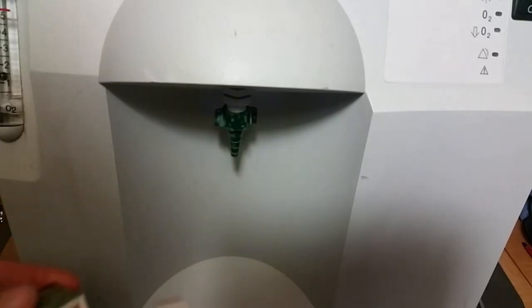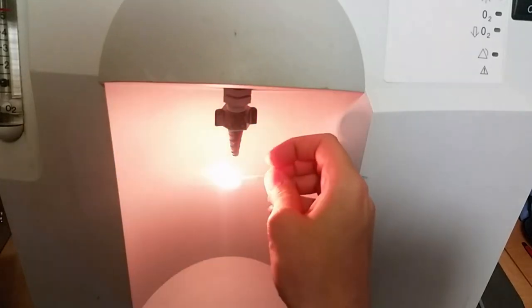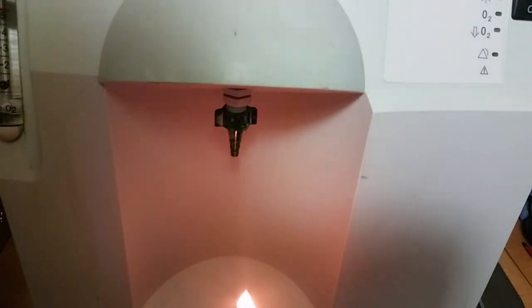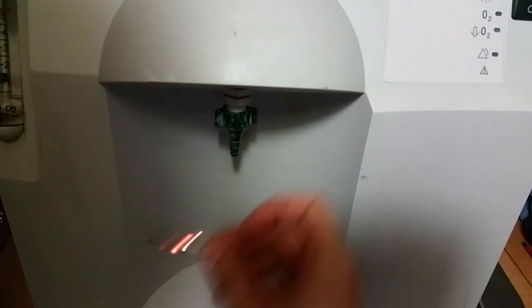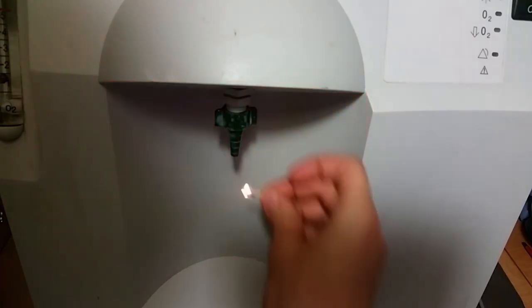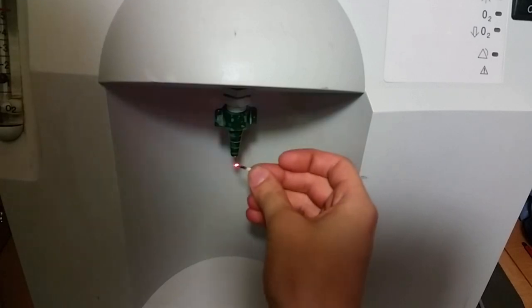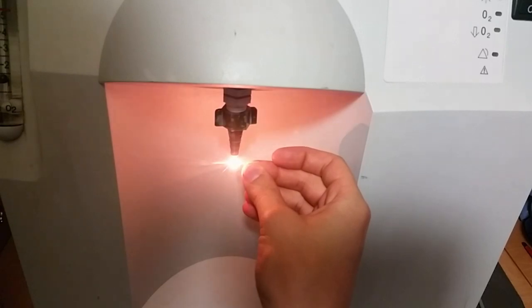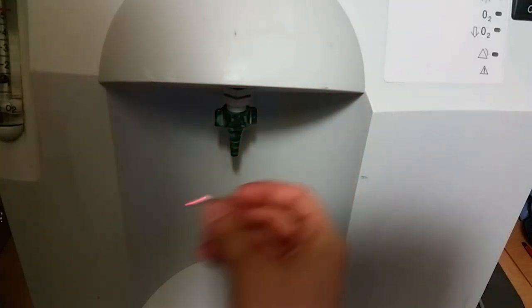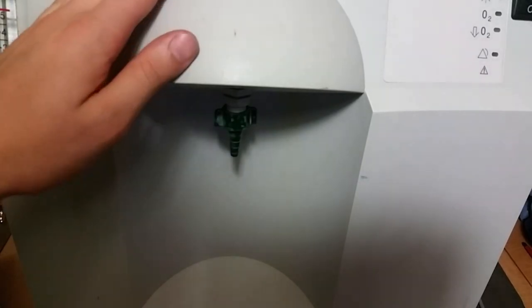This is maybe not the best oxygen test, but I'll test it anyway. Look at that — it burns pretty badly. We're definitely getting some oxygen there. Burning my fingers! But yes, this is definitely giving out some oxygen.